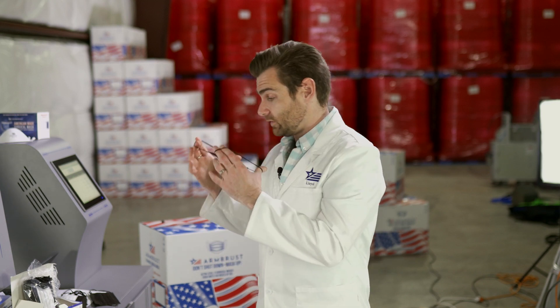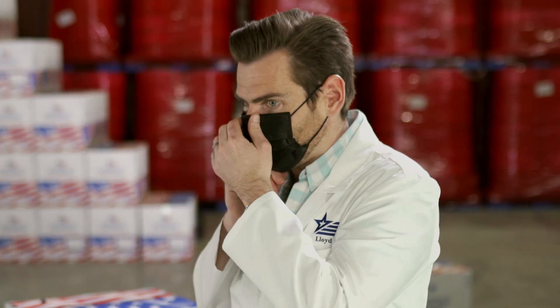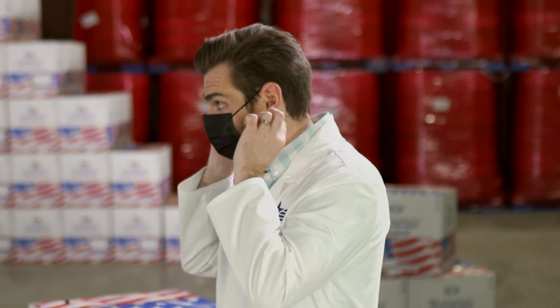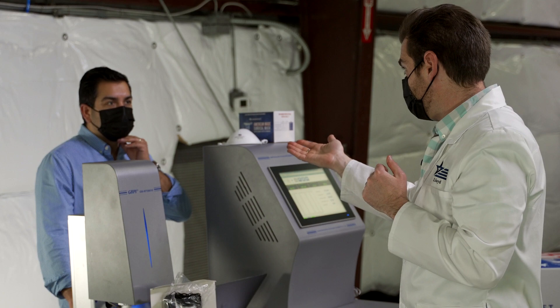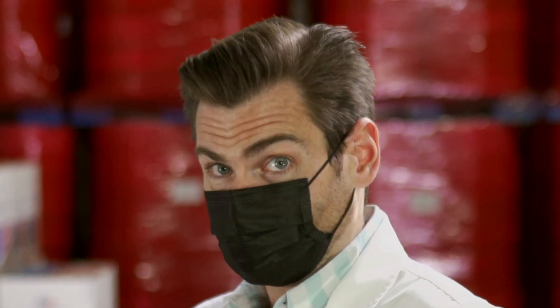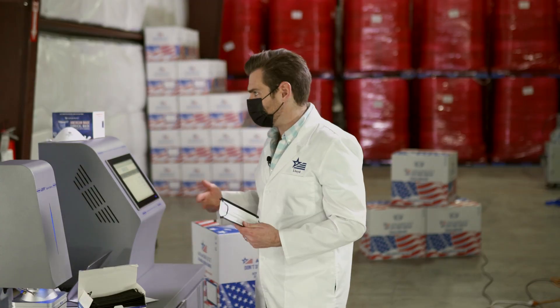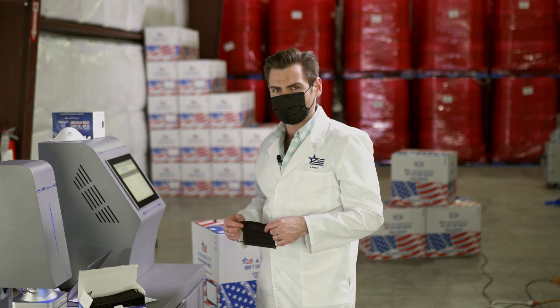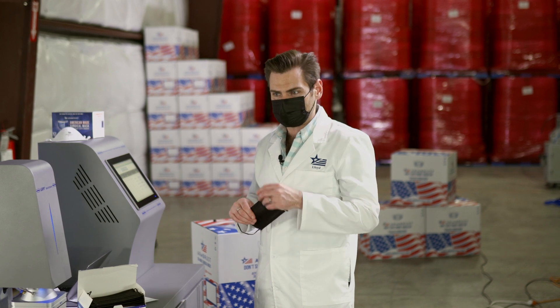This is having medical claims, so we'll see. The smell — that's a nice nose wire though, very strong nose wire, good fit, ear loop is very comfortable. Looks great, at least on you. The smell is like a little bit of that glove box, iPhone smell — it's a little strong. I'd say it's medium strength on the smell.